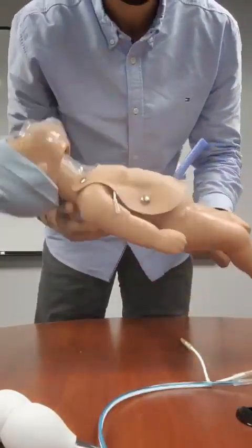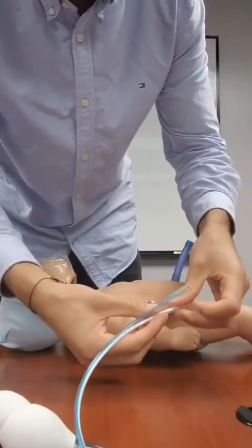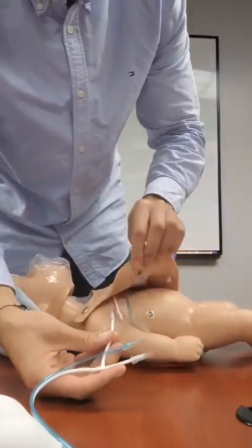I'm starting off by demonstrating how to attach the squeeze bulb tubing used to simulate signs of life on the baby. So I'll open this up just to give a clearer view.